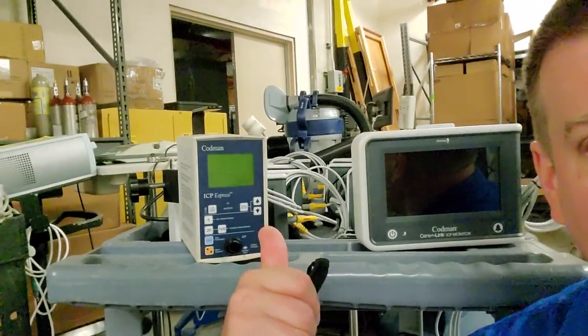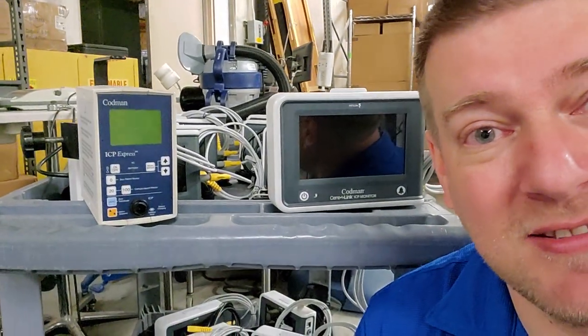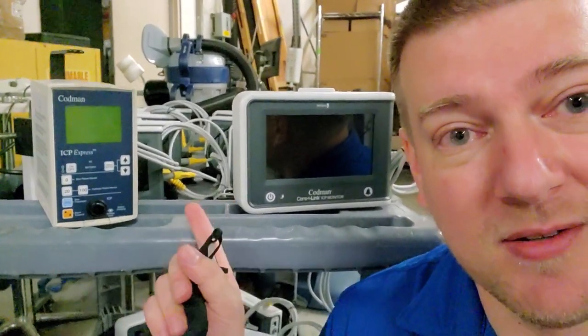And this is a hell of a lot better than what we used to use. The tried and true Codman ICP Express. Holy cow, let's take a look and see what it's got compared to the old one.